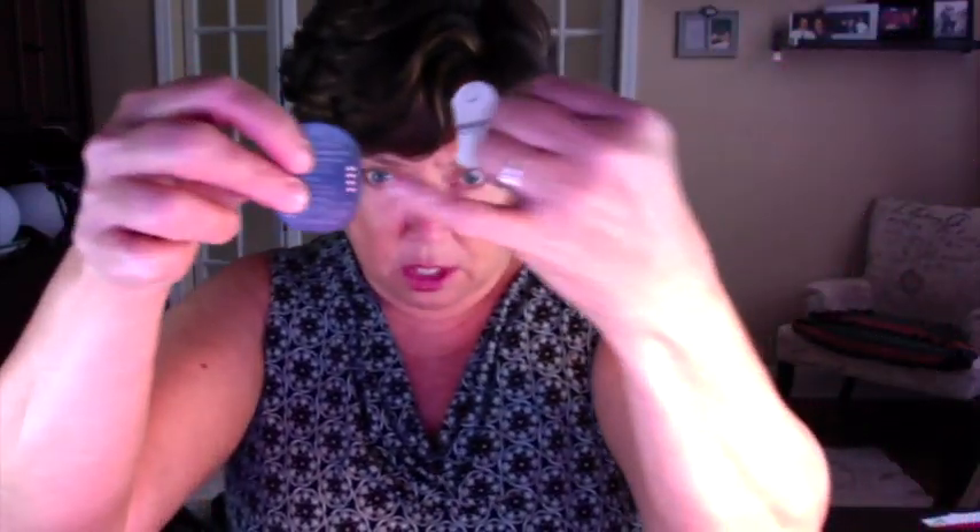You're going to cut the circle out, and I'll show you a little trick. When you get to the bottom, you're going to leave a little tab. I've left a little pull tab here — you're going to do that. Also, on one side you're going to cut a little half-moon out. The reason for this is because you have these contacts and you're going to need to charge the transmitter. With no tape covering it, you can pop it right into the charger and take it out.